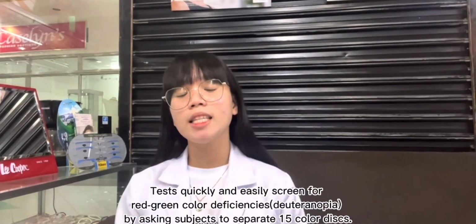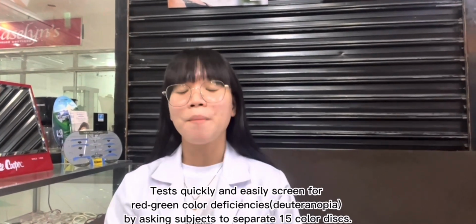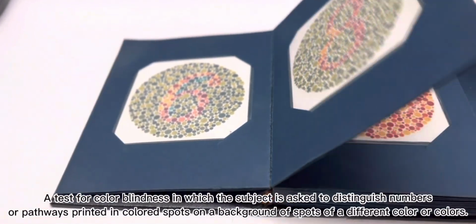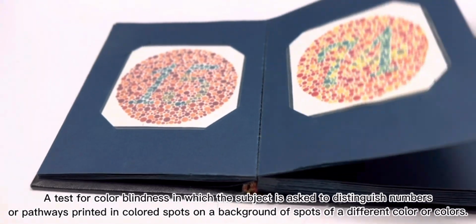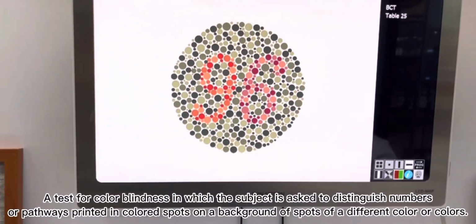Test quickly and easily screen for red-green color deficiencies or deuteranopia by asking subjects to separate 15 color discs. Ishihara test plates, a test for color blindness in which the subject is asked to distinguish numbers or pathways printed in color spots on a background of spots of a different color.